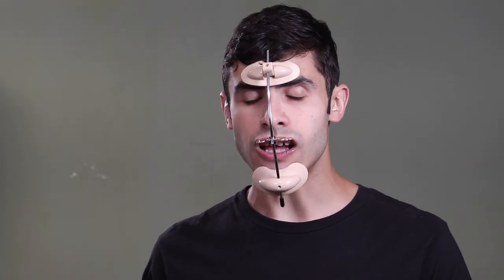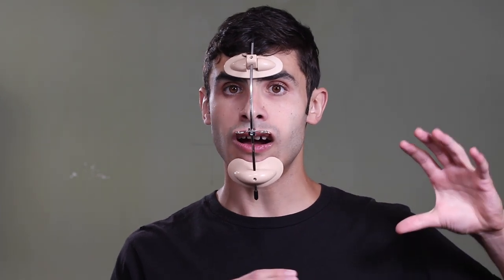To say a word about my own experience with the face mask before I sign off: I haven't worn this thing much and I'm not going to wear it much. Next week at my appointment with Dr. Zubad Nuwaz at the Gelb Center, my orthodontist, the hooks are going to be removed so that a scan can be done to get my clear aligners — my Invisalign — to start straightening out my teeth. So you might be wondering why I'm quitting on the face mask. I just finished expanding the MSE to my maximum of 84 turns, so I maxed out my MSE last week, and this is prime time for me to be using face masks. Why am I not going hard with face mask for the next month or two? Several reasons.